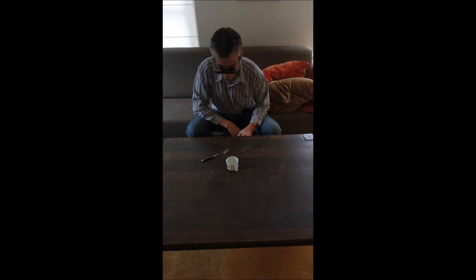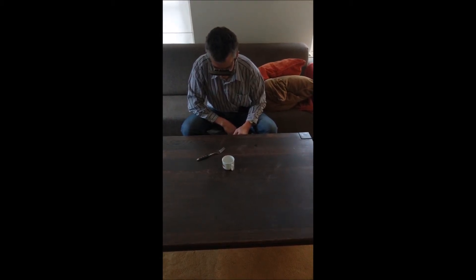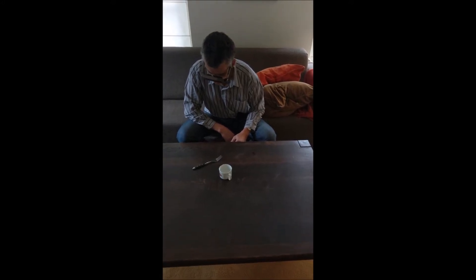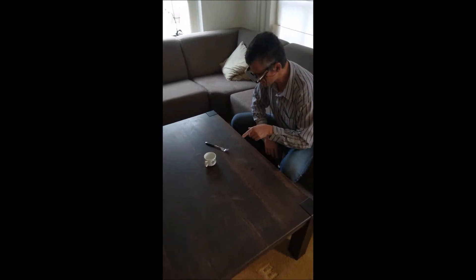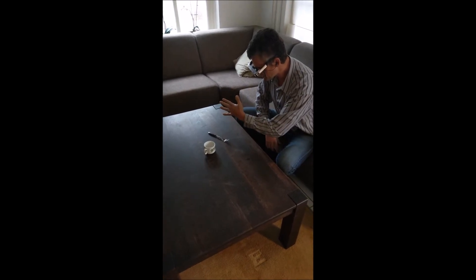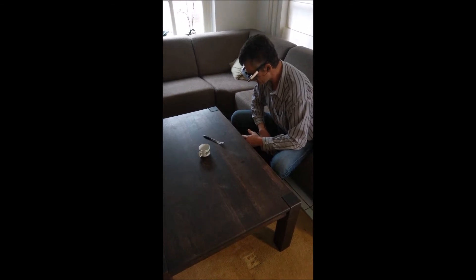Now I have that done. I'm looking at something here that's down low — now I'm looking straight at it. There is a round base, and then a bar going up like this, and it looks a lot like it might be a knife.